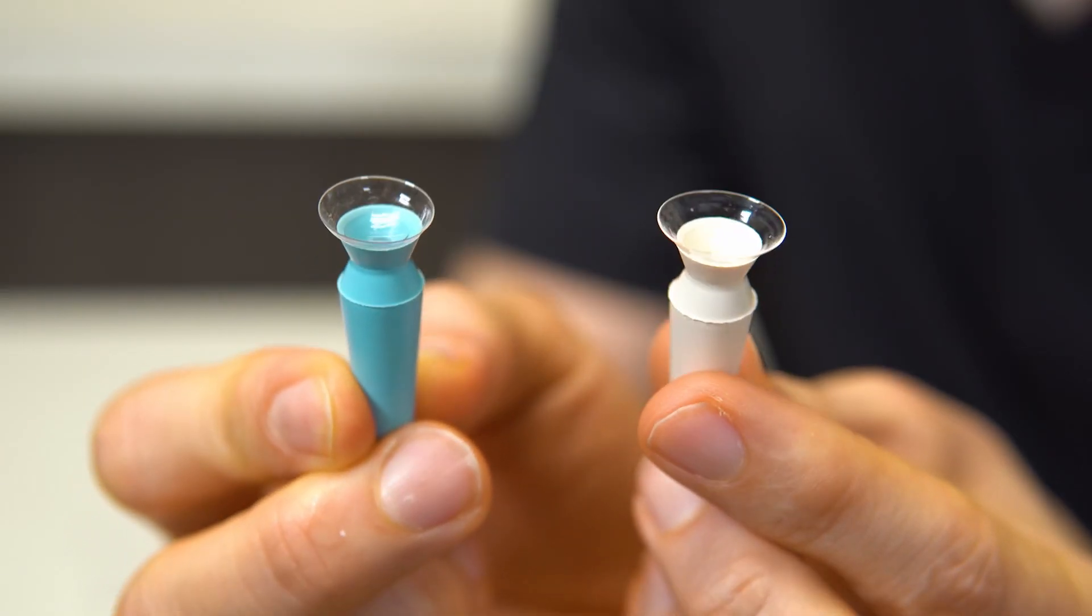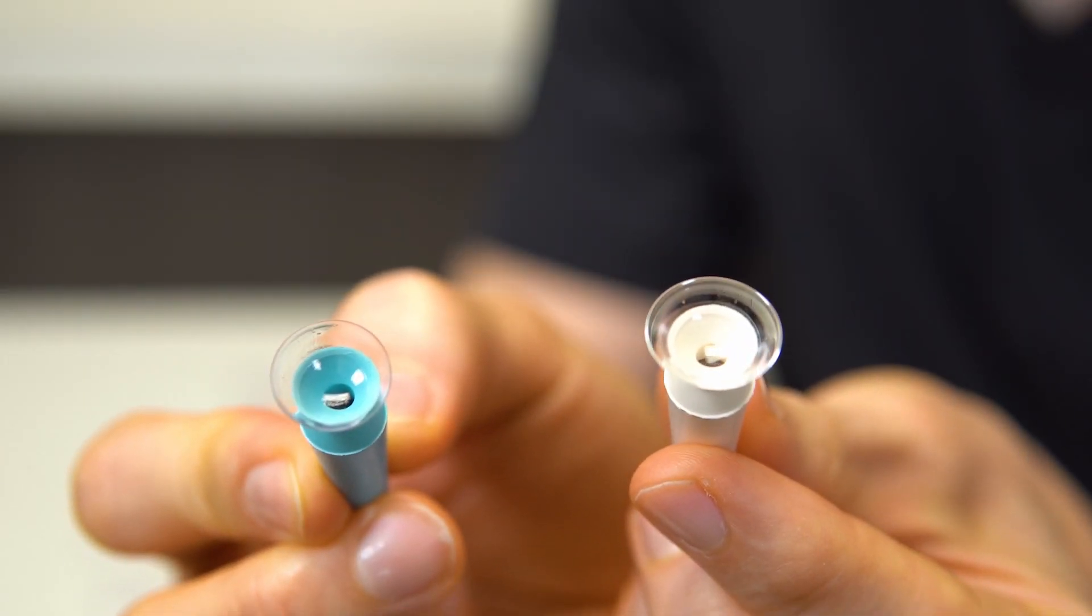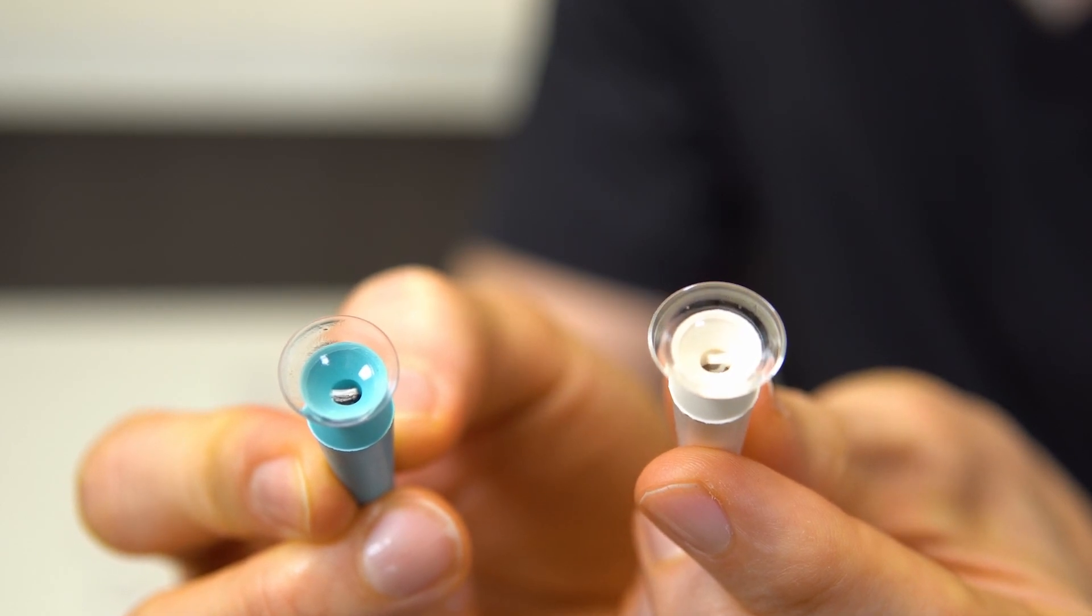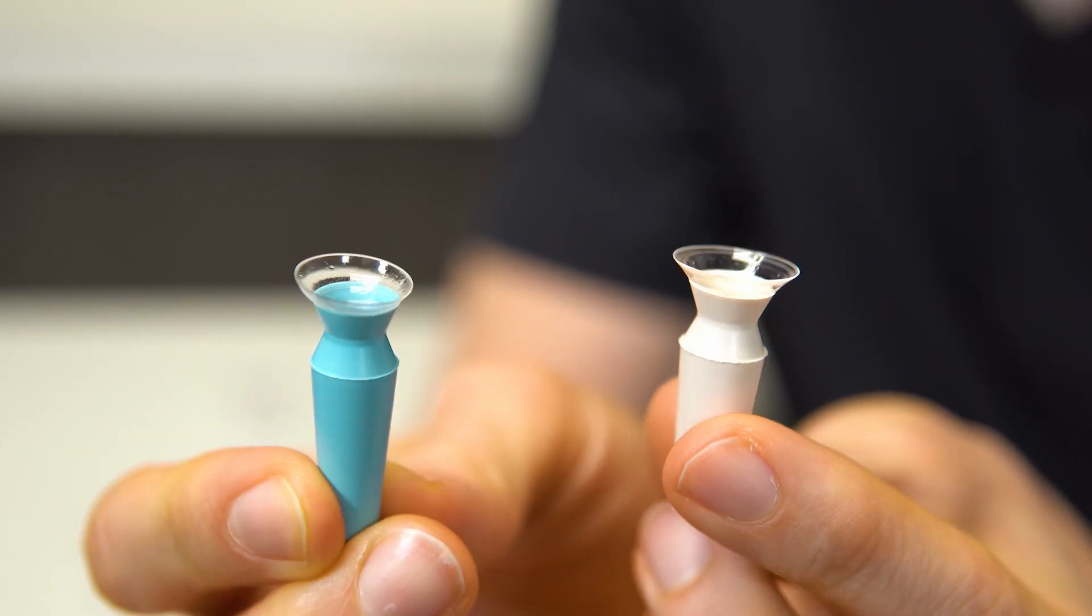Hello, I'm Dr. Joseph Allen, and today we're taking a look at the S5 lens insertion system from Augmented Vision Labs. If you have ever worn scleral or hybrid contact lenses, then you know firsthand that they can offer excellent vision and comfort. However, you've probably also noticed that they are much more challenging to insert into the eye versus soft contact lenses.